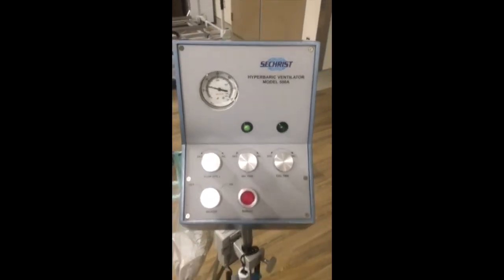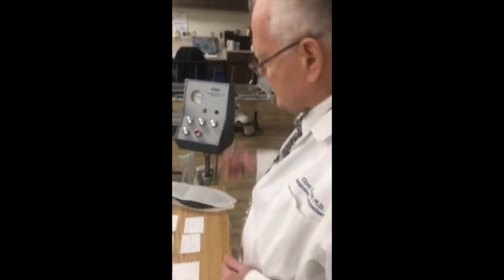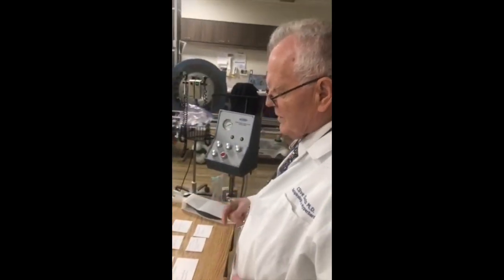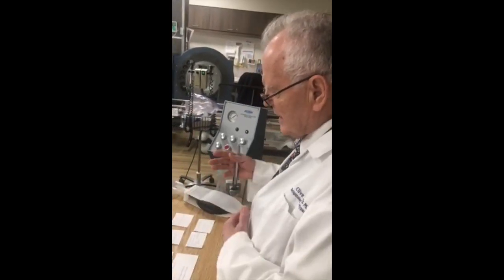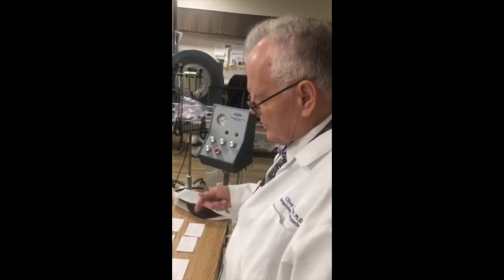Okay, go ahead, Claudia. Well, to talk about the Sechrist ventilation, we need to talk about the concept of the cycle of breathing. We have an inspiratory period and an expiratory period, the sum of which is the cycle length.